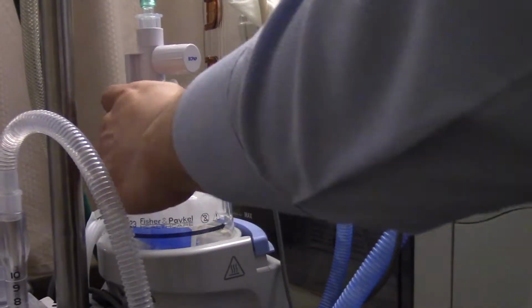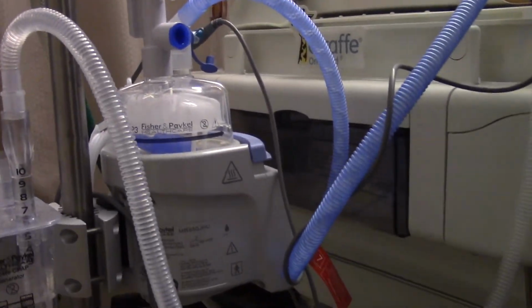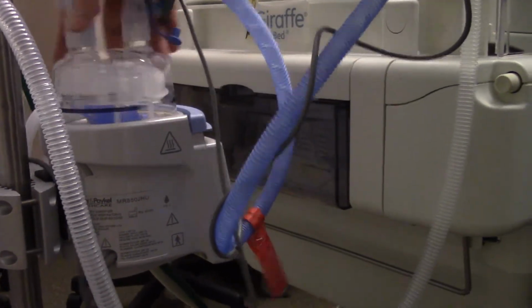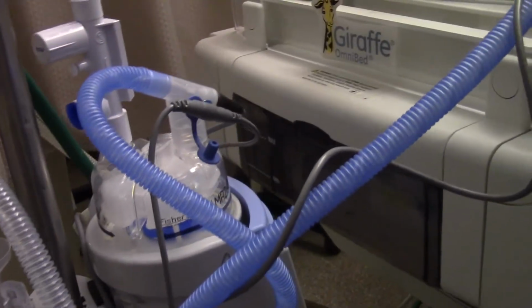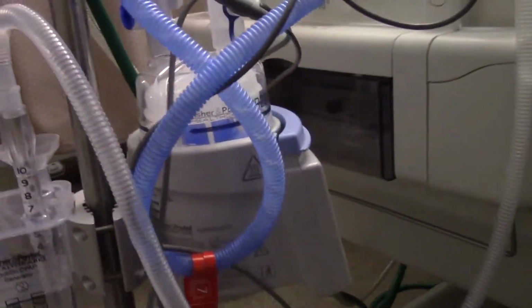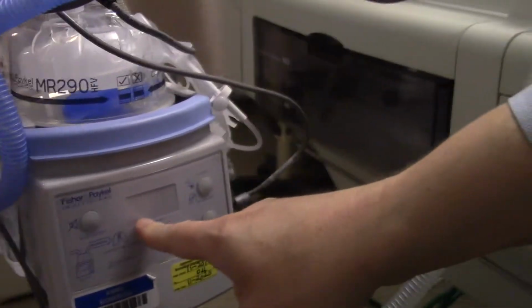So we'll keep that closed for right now. And then of course just the heater pot and heater chamber, which is the same, you'll see this on high flow setups as well, but heater wires in there controlling the temperature, reading the temperature, and then the front face of the heater, turn that around, and you'll see your heater temperature displayed here.